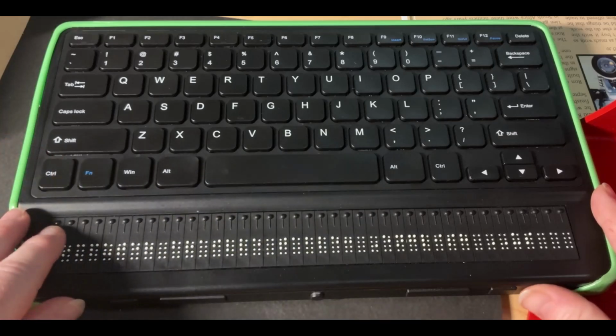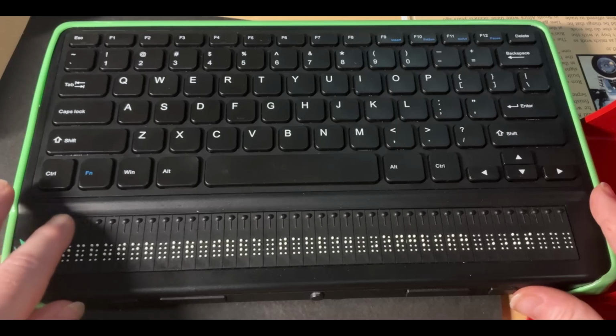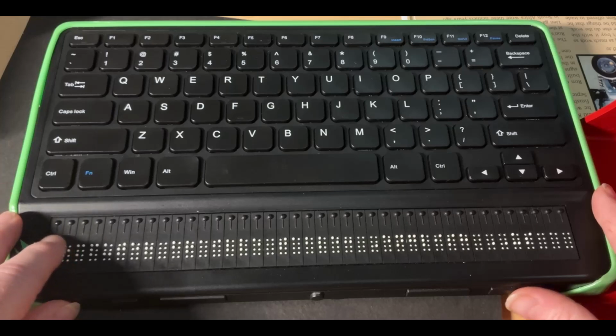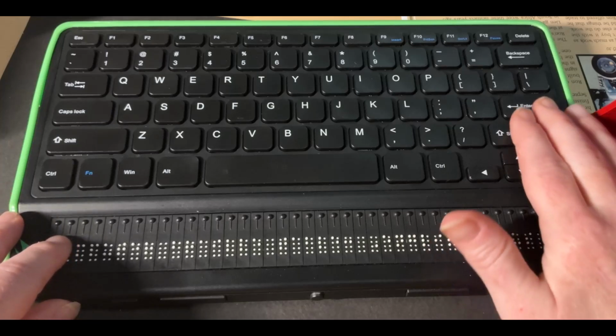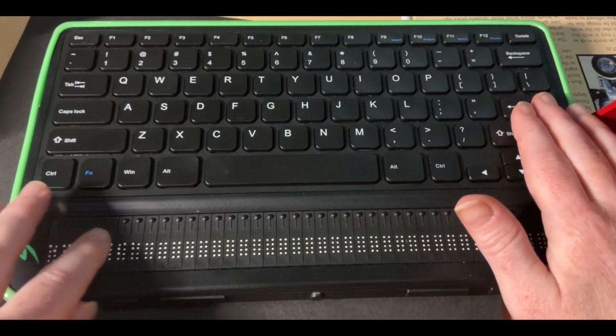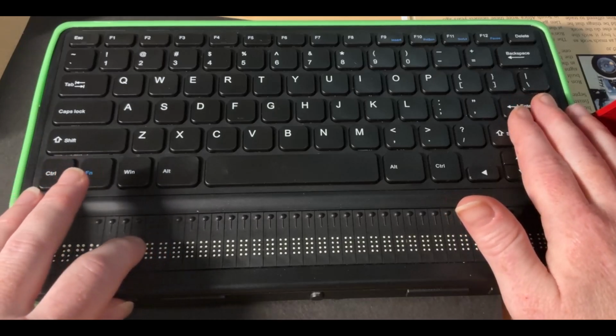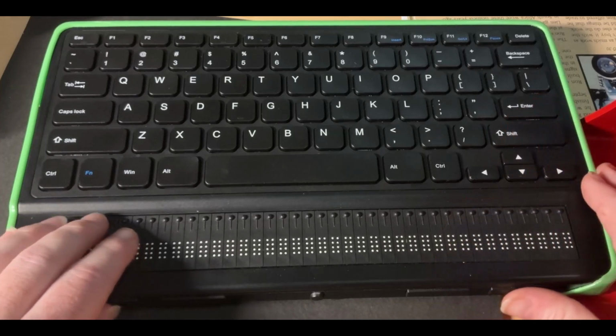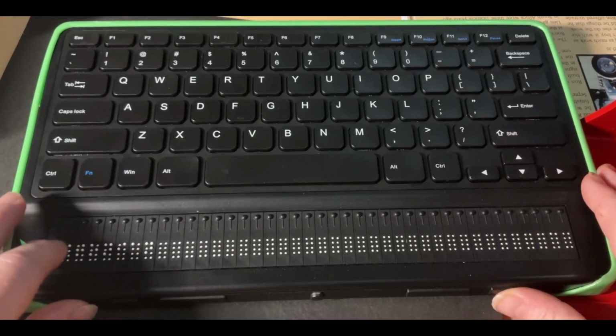So anytime you have that, it's going to ask you if you go in there to change it. And I'm going to go into the computer Braille table just to show you what that looks like. So I'm going to press enter. And the first thing it's going to give me is English. That's the language. I could use my next and previous thumb keys to scroll around the other options.